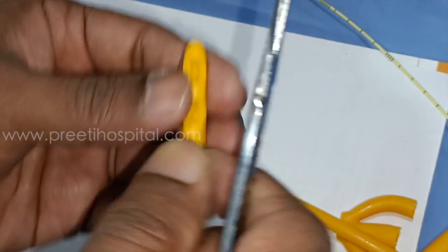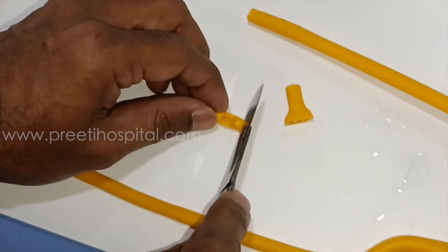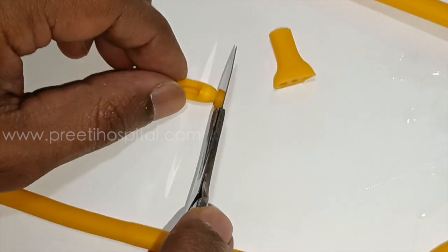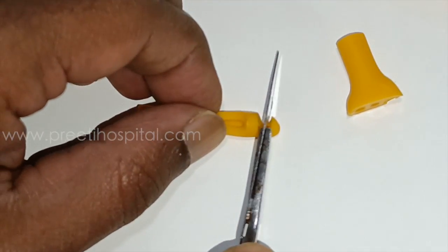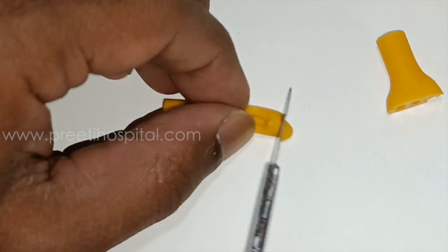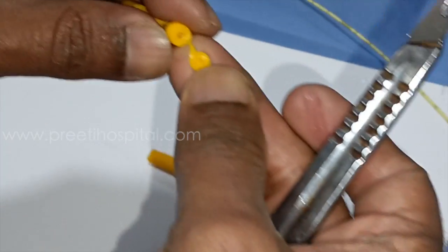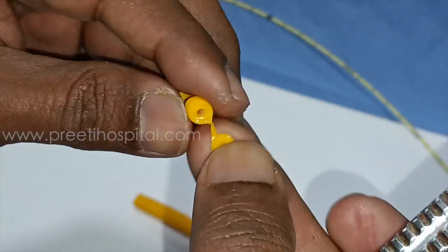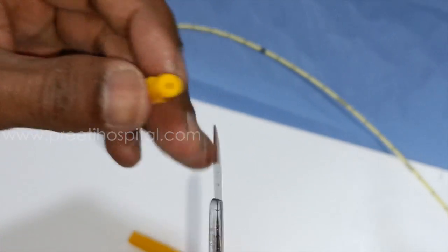If you see here, the tip of the Foley's catheter — we think that there will be a complete solid structure. But till the tip, the last part of the tip, you will see a hole. This hole helps in making a guidewire pass through. Almost till the last part, this hole is present. It is a single channel.